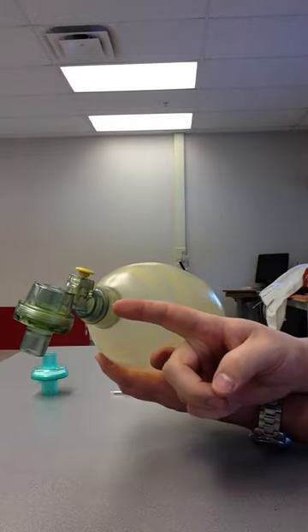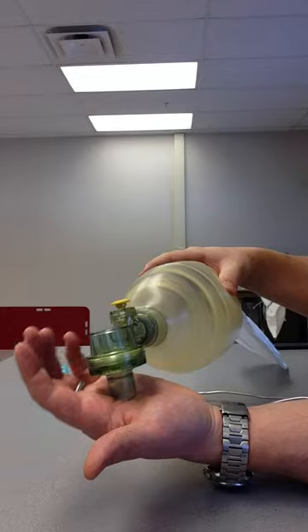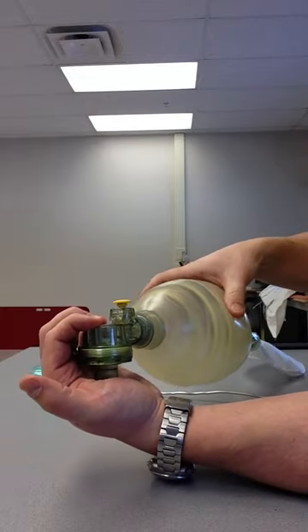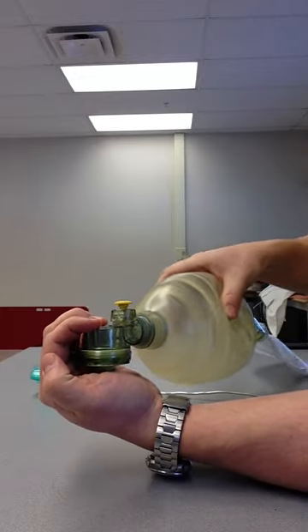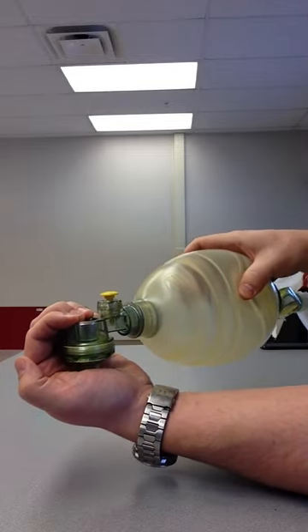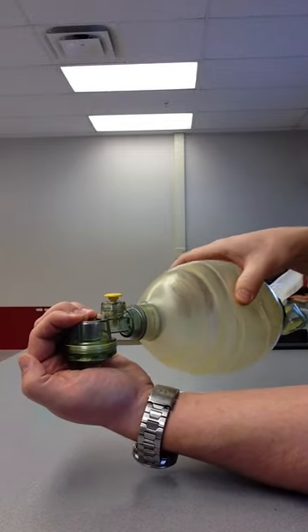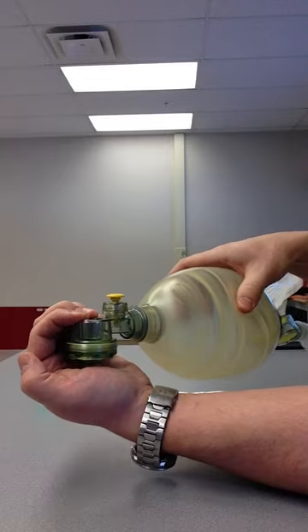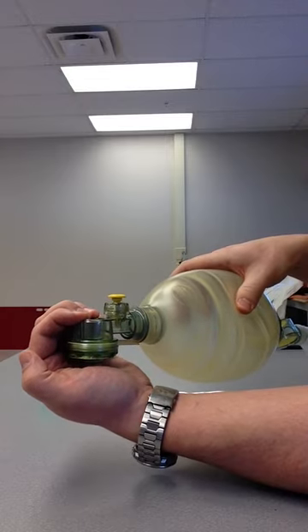Second test: check that inspiratory pop-off. Occlude the patient connection, squeeze the bag with substantial force, and check that pop-off. See if it's holding pressure too. So try not to make the pop-off go. See what it feels like, how the compliance of the bag is. And it'll give you an idea once you're bagging too.